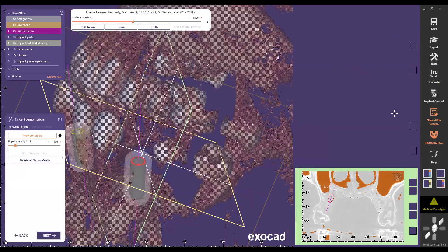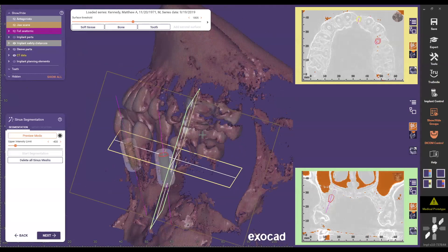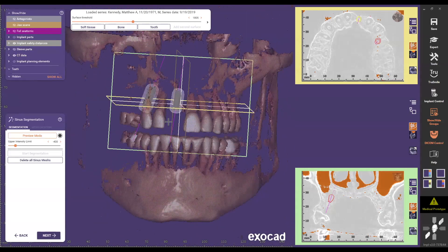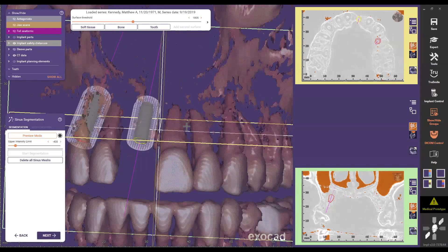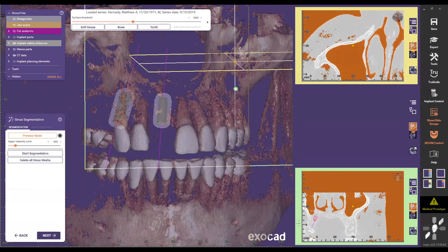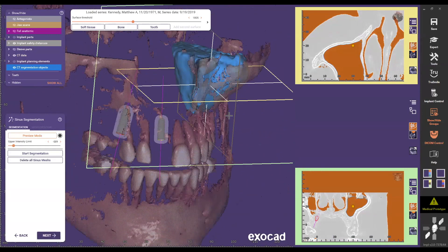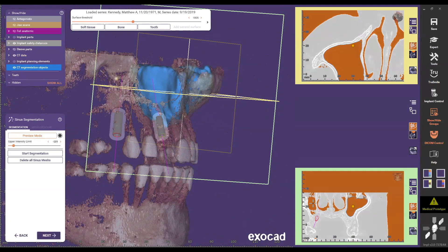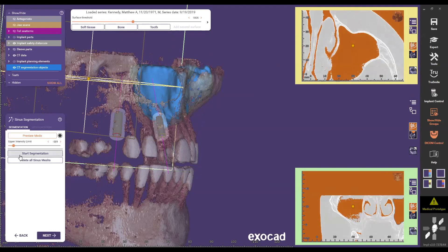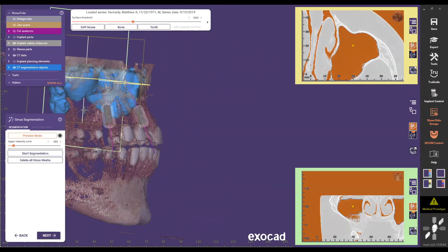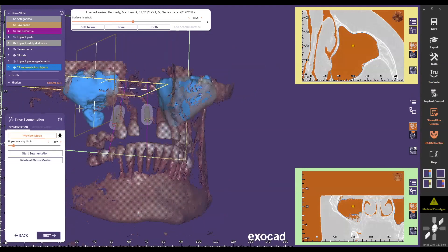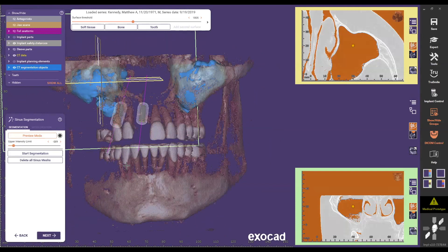Jumping into the wizard, Dave demonstrates sinus segmentation — a new feature being added to the upcoming release. You highlight the sinus region, select a seed point, start the segmentation, and create a mesh that is visualized in 3D. This is useful for alerting you to any implant collision near the sinus, particularly for implants placed further back.